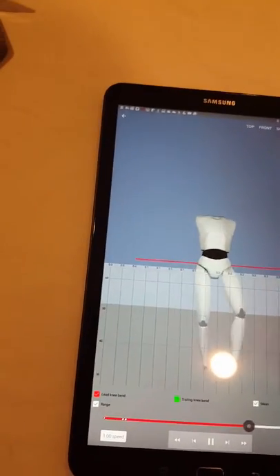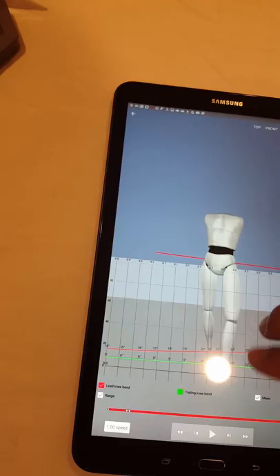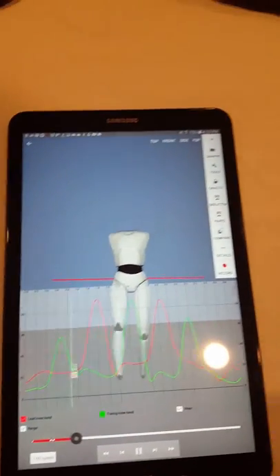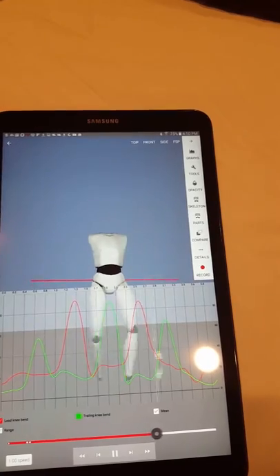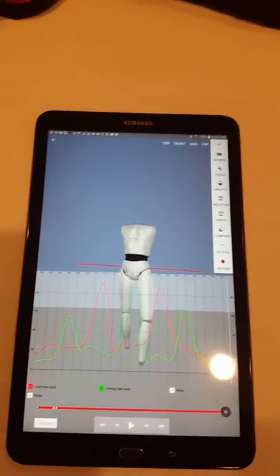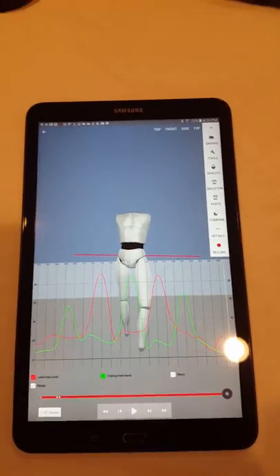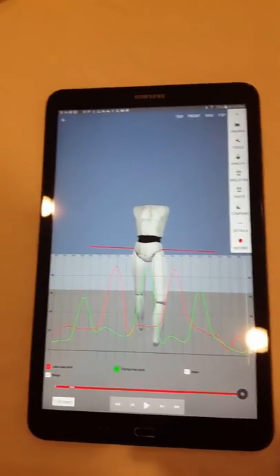Whoops. There we go, let's do it again. So obviously there's a lot more we can do, but this is actually just the first pass at developing the PT stuff. Dr. Takeda, what do you think?